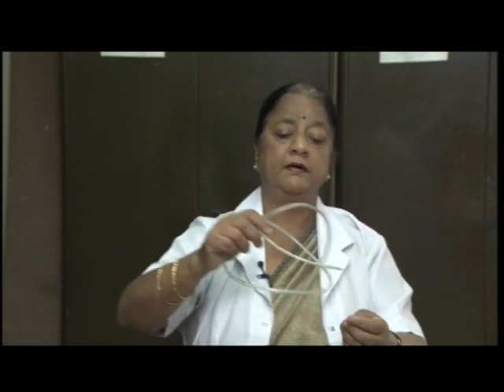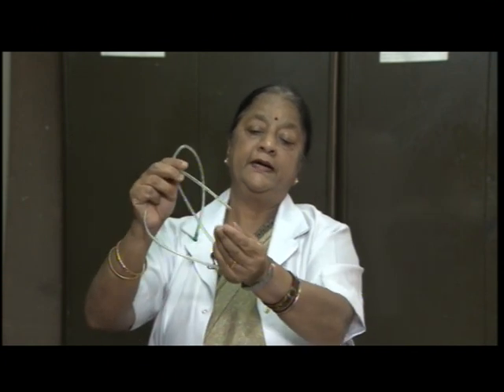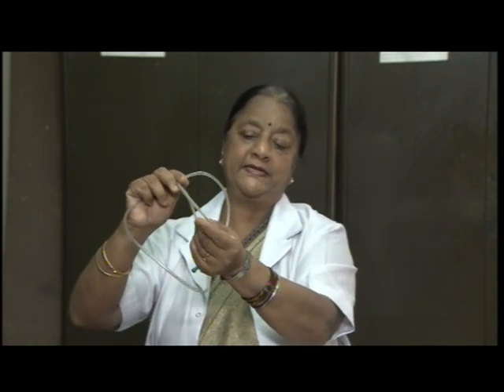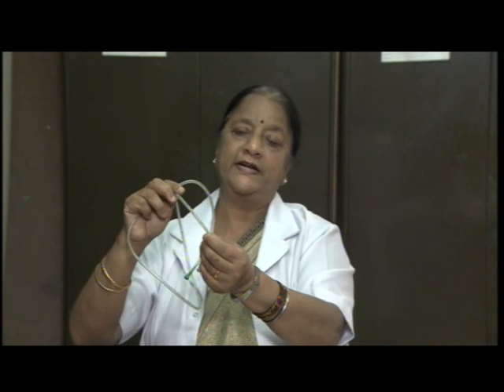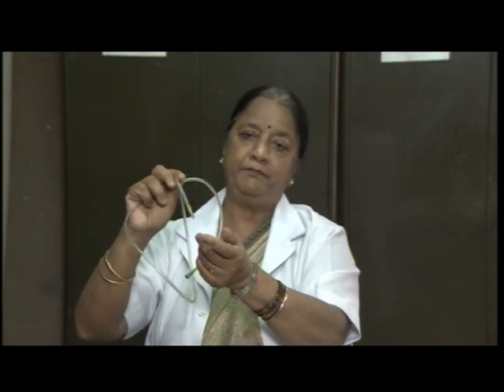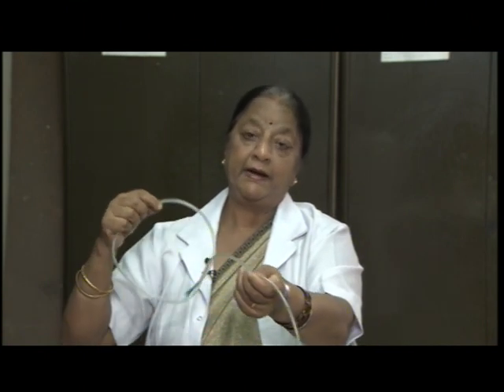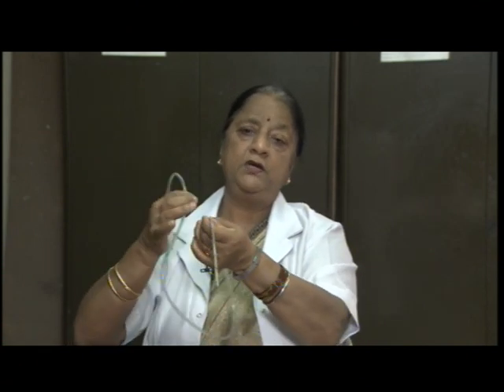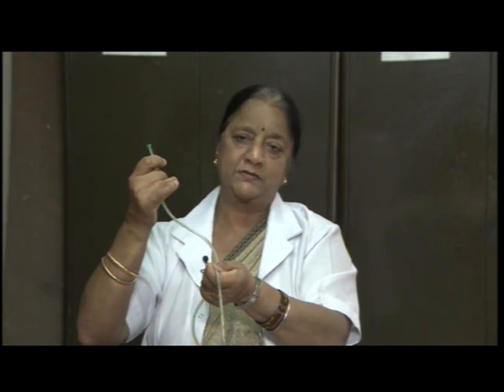There is another tube used for the same purpose. This is called Ryle's tube. It has a metallic tip at its end. So, this is also introduced through the nose, and this also goes into the stomach, and due to gravity, because this has a metal tip, it remains there only. There are least chances of it coming up and getting dislodged. So, this can be used either for feeding purposes, for those who cannot take food by mouth, or for suctioning.